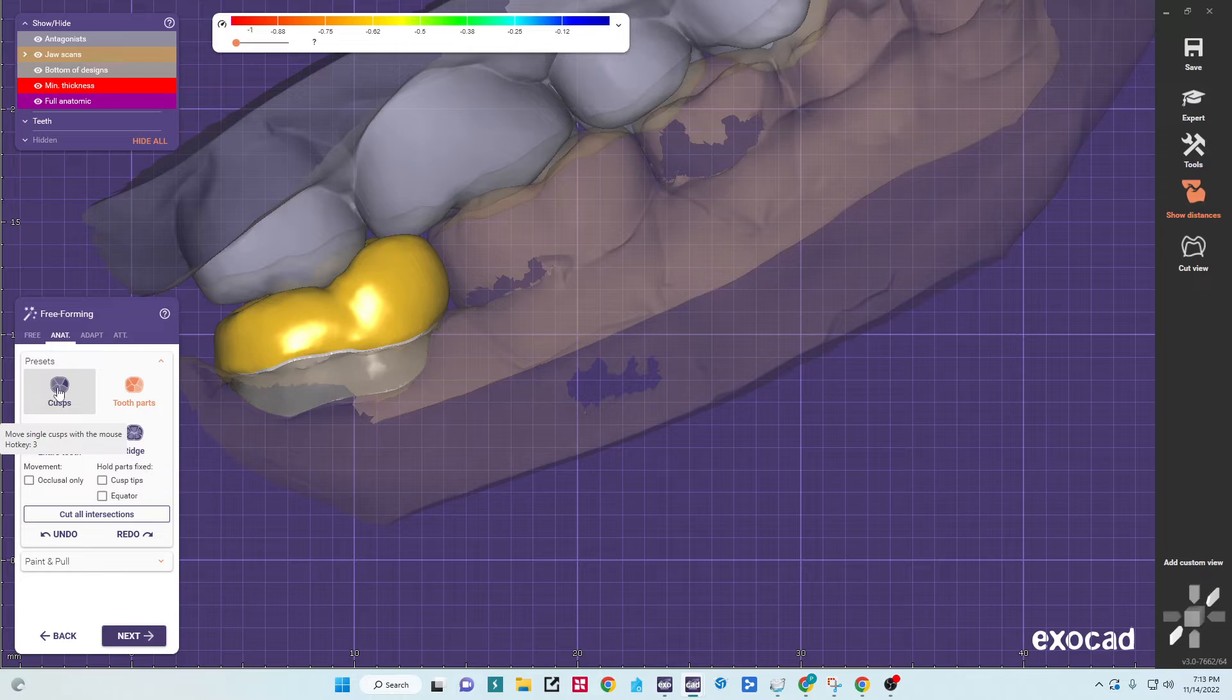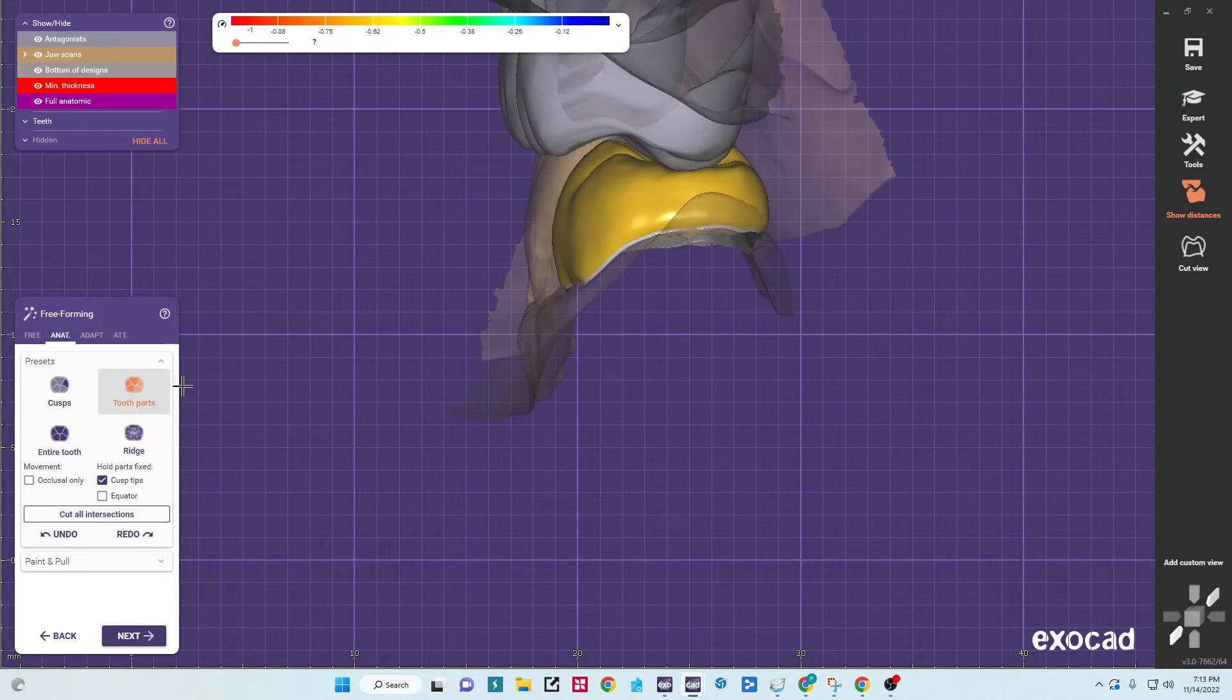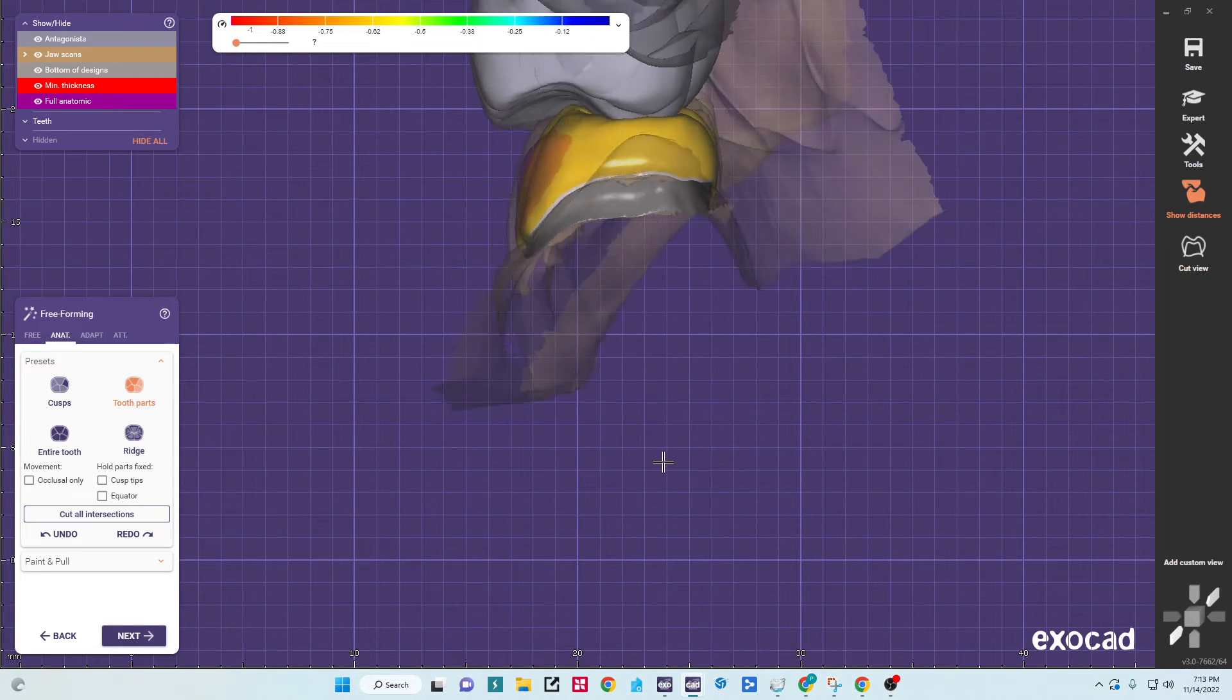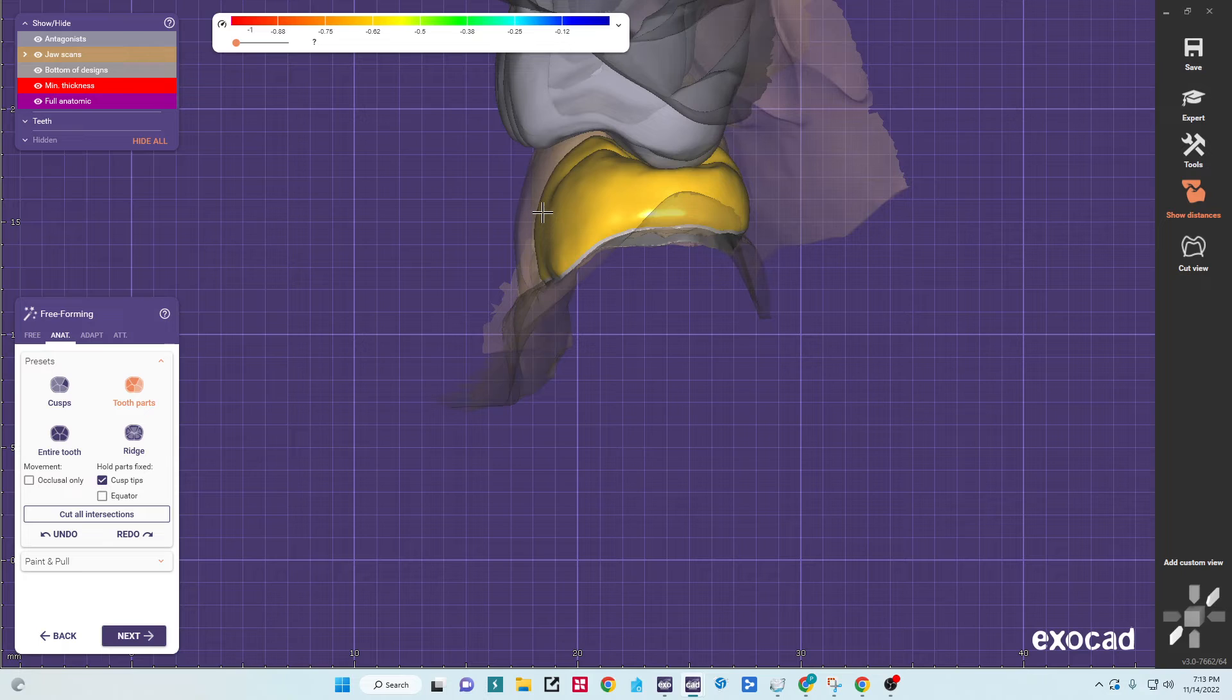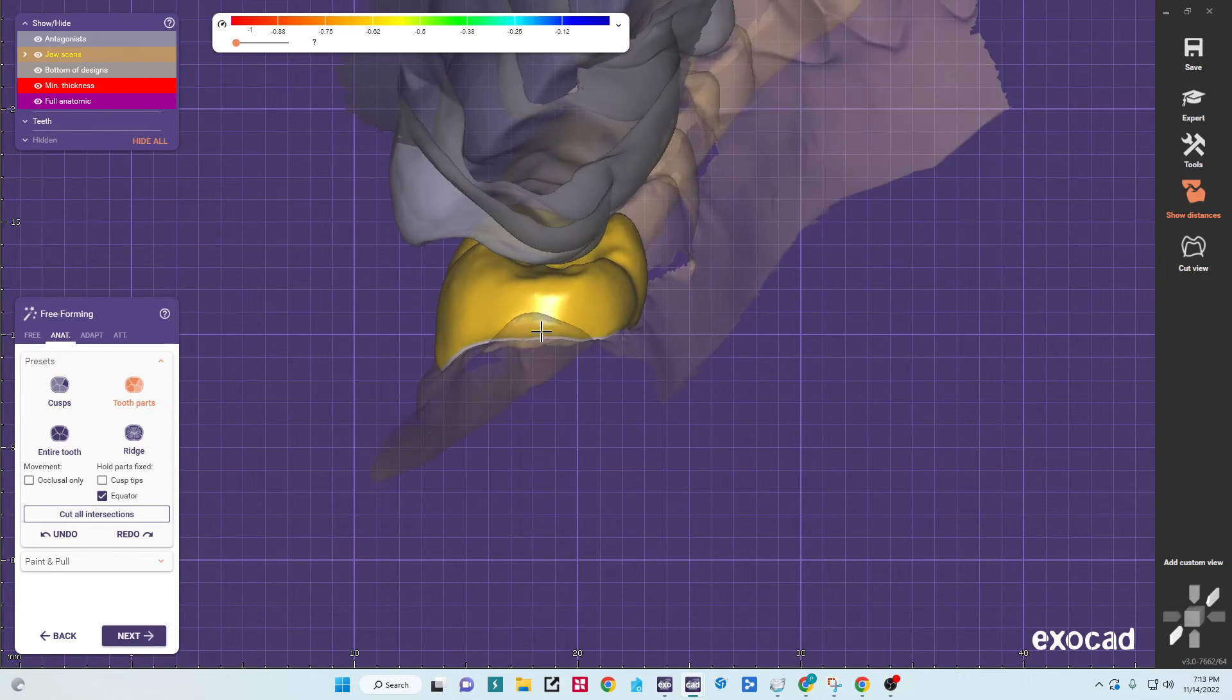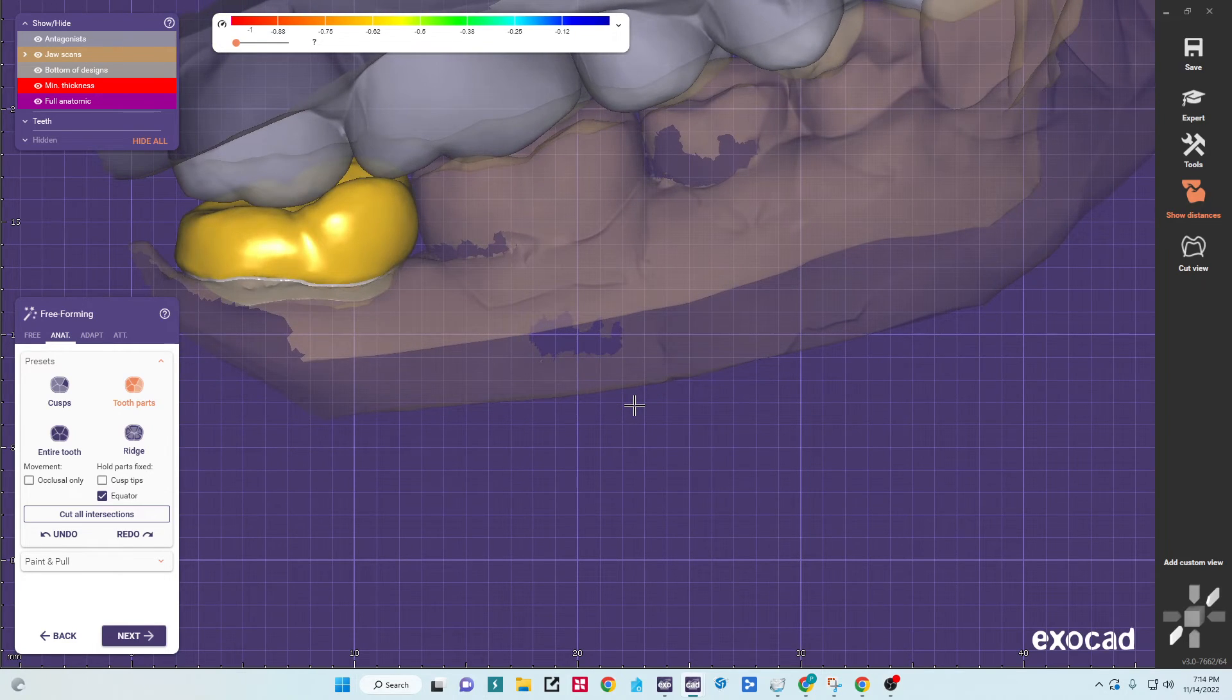So we have these morphing tools which are really great. And you can hold parts. So if I say hold cusp tips, say I just have, it's a little bulky on this side, I could squeeze it in that way. See when I hold cusp tips, what happens? I'll turn that off. And if I was trying to do the same thing, move it in, the cusp tips are going to move out of the functional groove there. So by locking in the cusp tips, it allows me to change just the profile without affecting anything else. The other tools we have, hold equator will keep this part from moving if I need to move a cusp tip. So if I want to pull that down, it keeps the rest of the crown from changing.